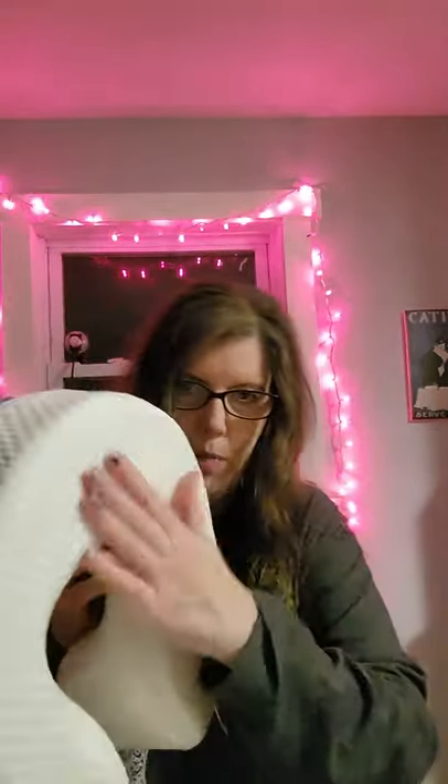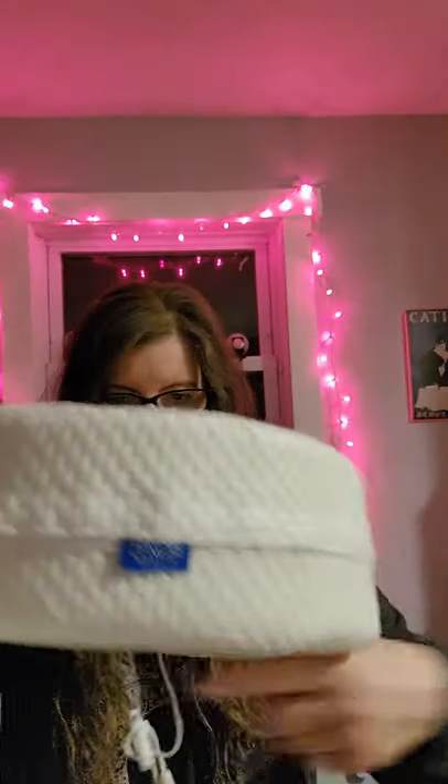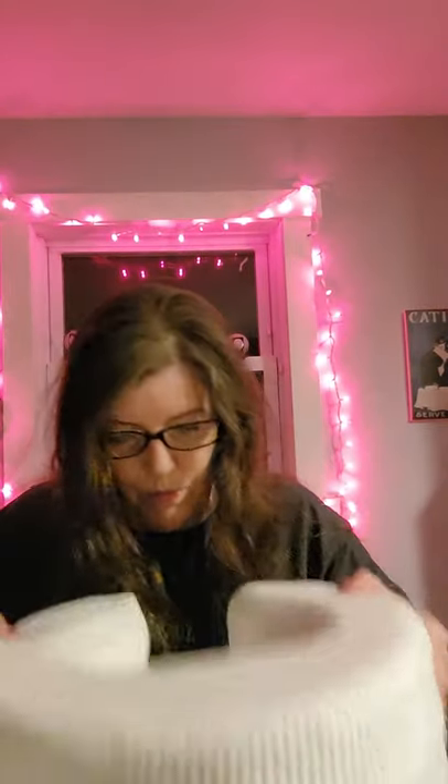I'm laying it on my table — it feels firm. The top part feels firm up here, so your face is not going to be smushed into the mattress. You'll have a little airflow underneath and your head will be face down. This could be used at a table, but I'm probably going to use it on my bed for the first three days, which is 72 hours of face down.